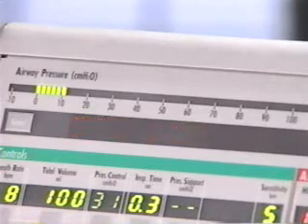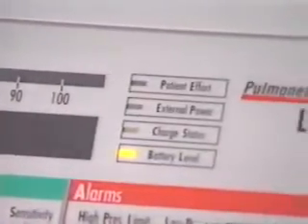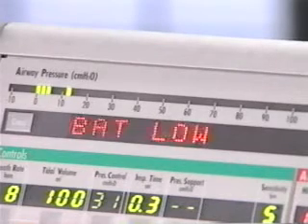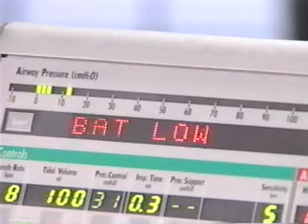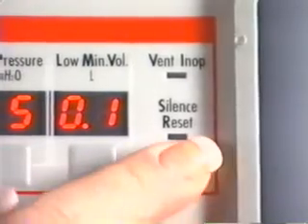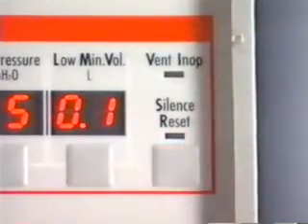Now we'll take a look at the equipment alarms. The battery low alarm occurs when the ventilator is operating on internal battery power and the battery charge level drops below the low threshold. When a battery low alarm occurs, the battery level LED is yellow, the battery low message is displayed, and the audible alarm is sounded. To reset the battery low alarm, press the silence reset button twice.